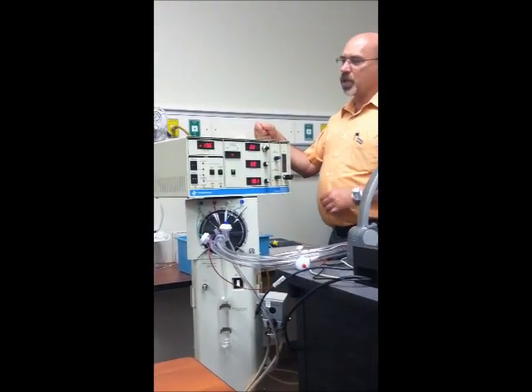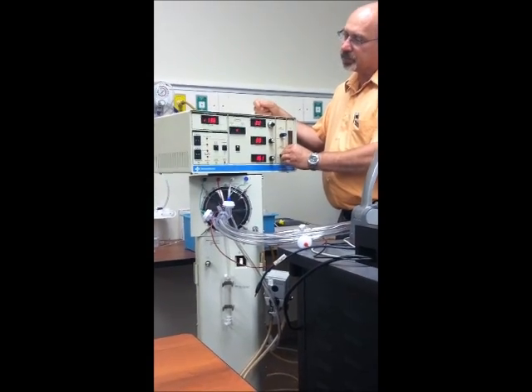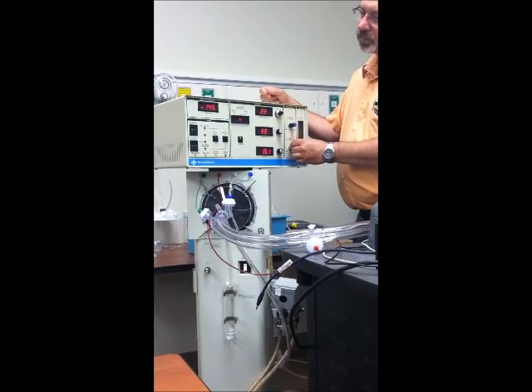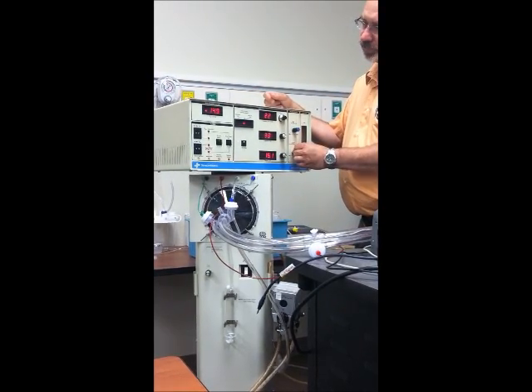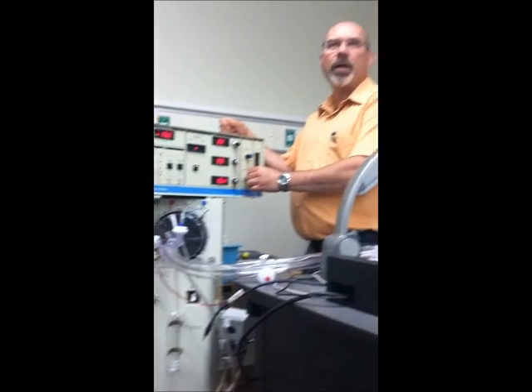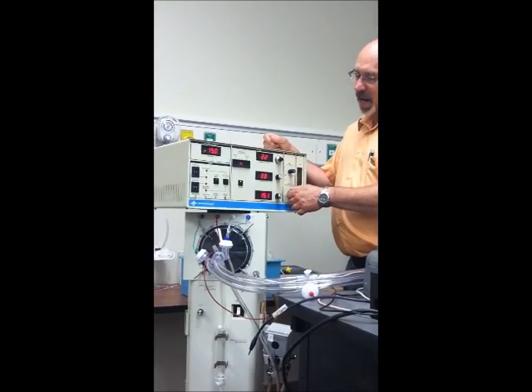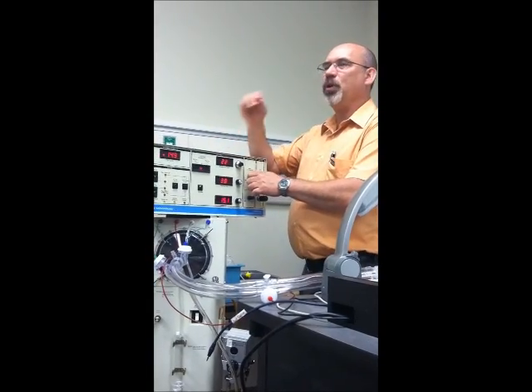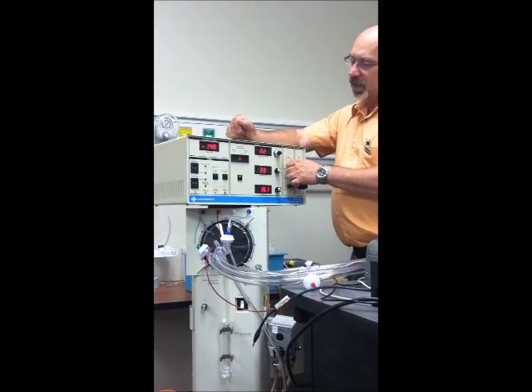Change mean airway pressure to 16. All right, which knob am I going to use to do that? Okay. It doesn't seem to want to go any higher than that. Oh yeah, the blue one. Well, I'm scared, so I'm going to back up on this green one a little bit because I don't know how high it's going to be. Let's go up, and I think what Sean said earlier is, crank this up. That's probably okay.